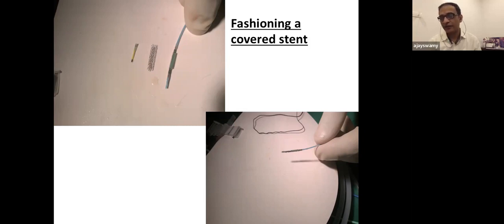Now you take another stent of the same size or slightly shorter. I mean, if you're taking a 20, you should take an 18, second one, and inflate that stent outside. Then take that stent off the balloon. Now you put this stent on top of this balloon. So now there is a stent, on that there is a balloon, and on that there is another stent, and you hand crimp it onto this. You can also take a silk thread, ravel it around, and then unravel it. It kind of fixes it very, very well. This works in proximal circulations if you're very badly stuck and you don't have a covered stent in a desperate situation. That's why I show it, because sometimes it gets you out of trouble.